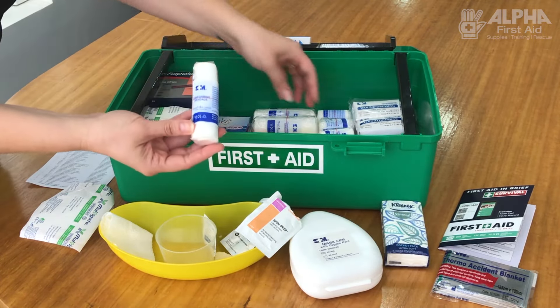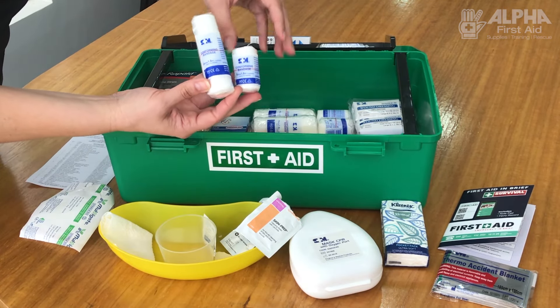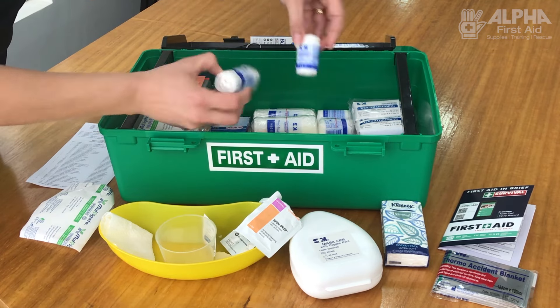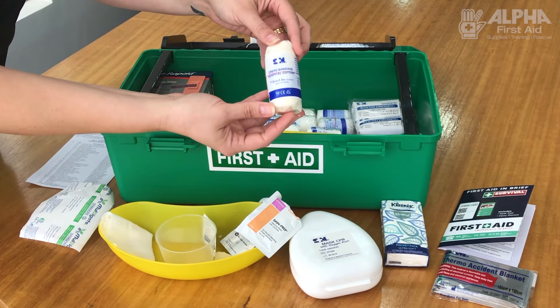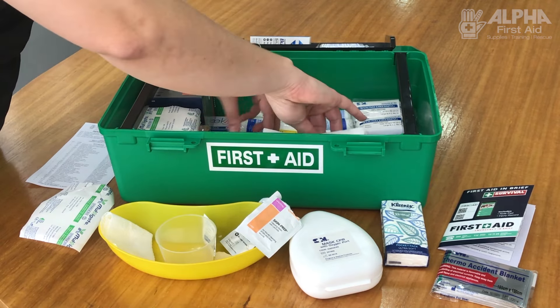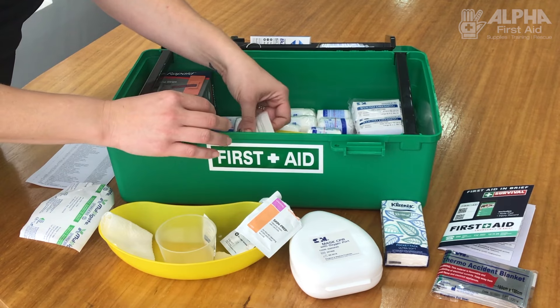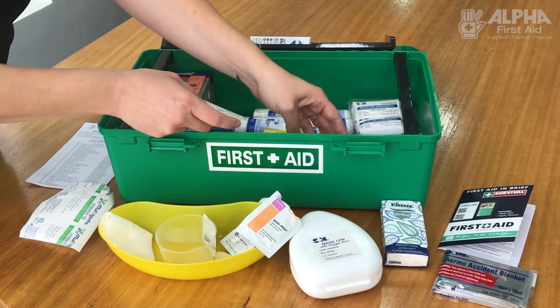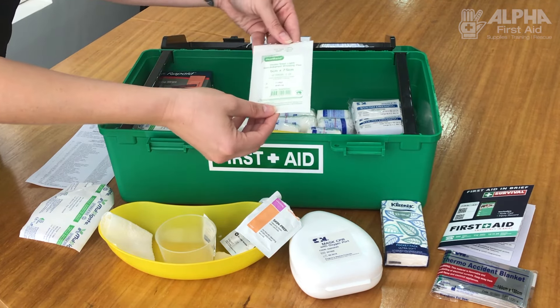There are plenty of bandages in different sizes and types. These conforming bandages are a nice light bandage. You've also got some crepe bandage — a little bit heavier and holds dressings in place. And there is a heavy crepe bandage, usually the brown ones, which is used for compression and also for sprains, strains, or snake bites — we'll come across that one in a moment.